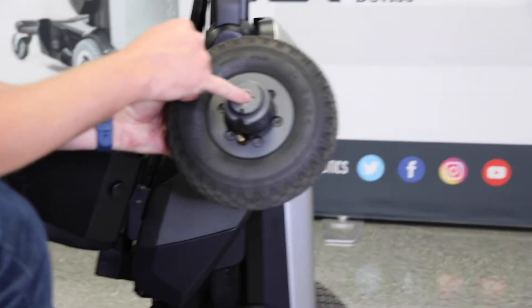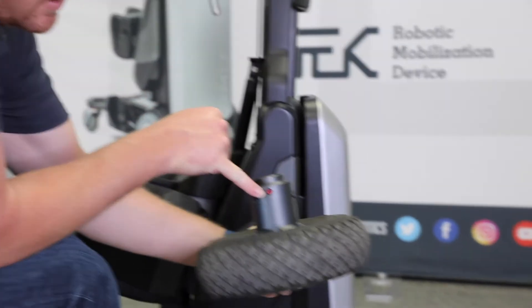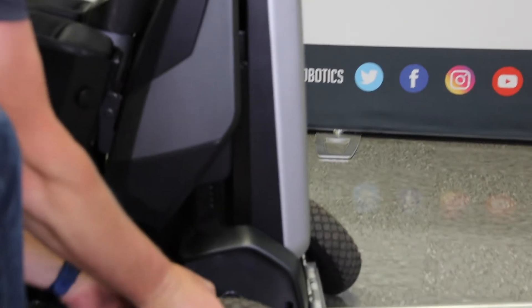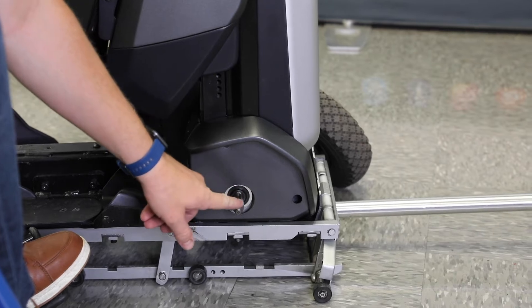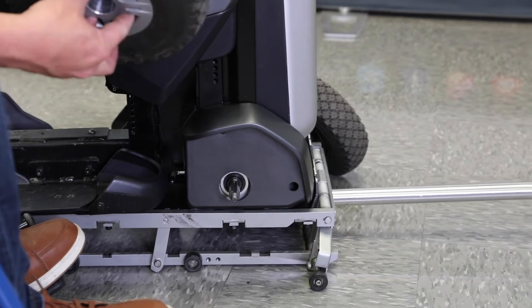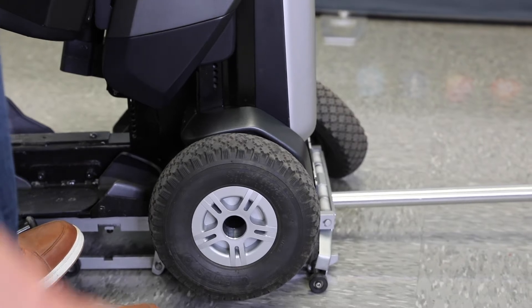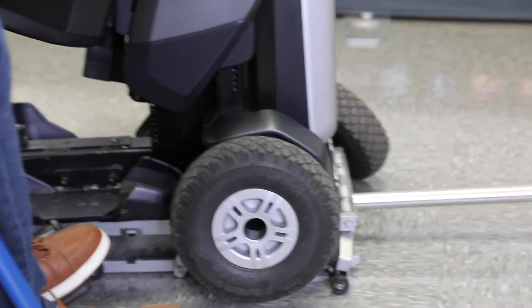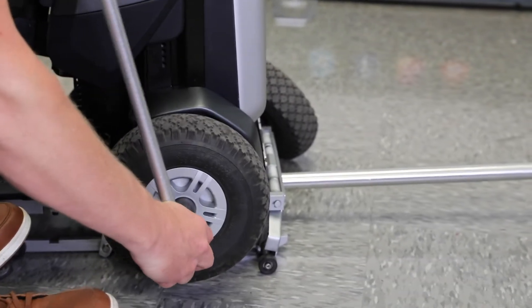There's a pin in there that'll lock along here, and this red dot right here will show you where to line that up. As you can see, that's where it's going to line up with this pin. I'm just going to slide that wheel on. Once it's on, I've already got the bolt in there, and I'm just going to go the opposite way of loosening it to tighten it up.